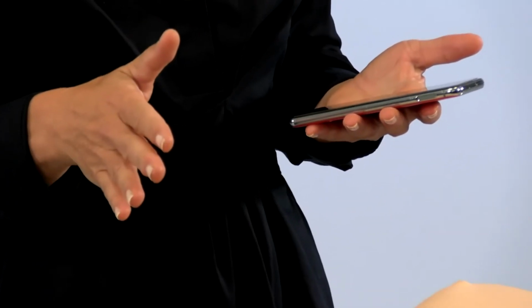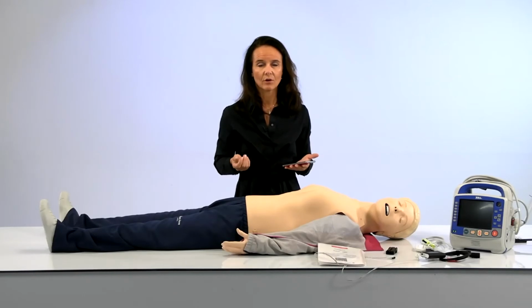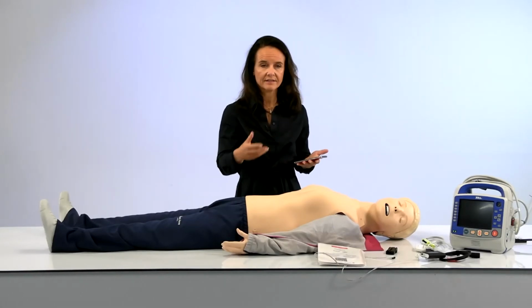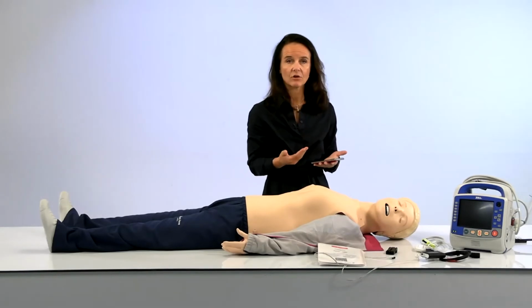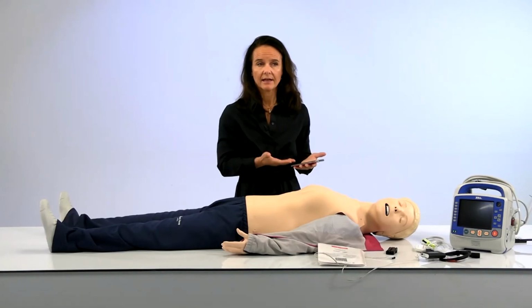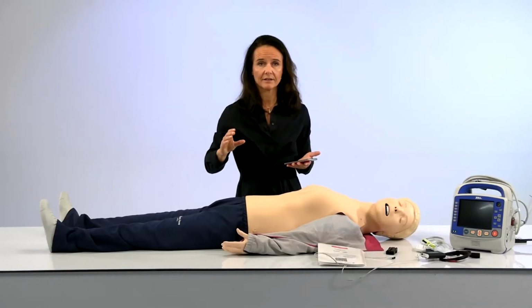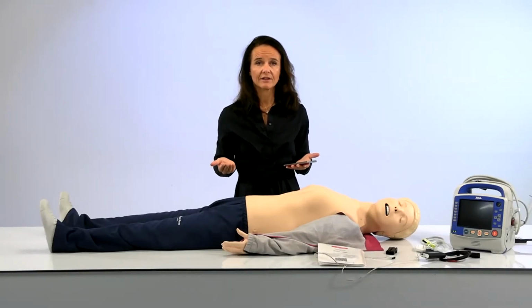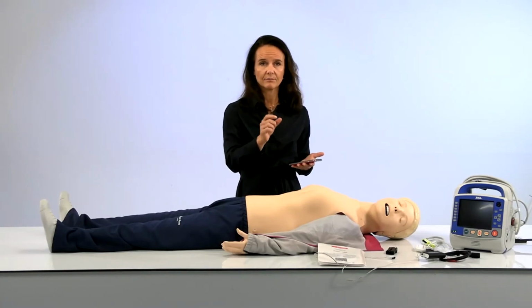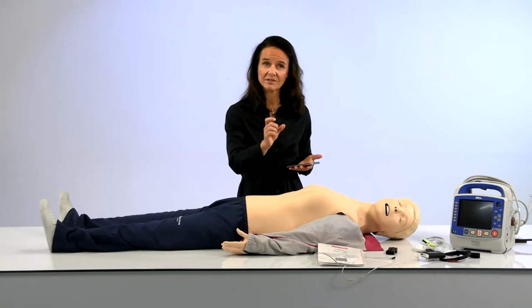So specifically, this means that when the pads are applied, this is automatically detected and logged to the feedback device. So it will start sending rhythms. It takes some of the cognitive load off the instructor. Also, during the session, all the shock events that are coming from the defib are logged into the timeline, which is presented as a debrief timeline afterwards. And in Team Reporter's case, it's even presented in the video, where you combine the video and the timeline. So from a debriefing experience, it provides a very good solution because the instructor is able to pin out the pauses, for example, the pre-shock and the peri-shock pauses, and focus specifically on those.